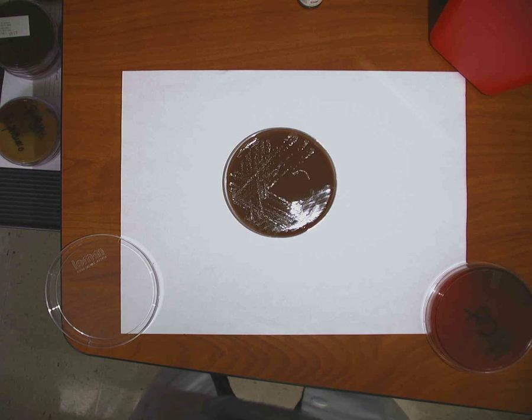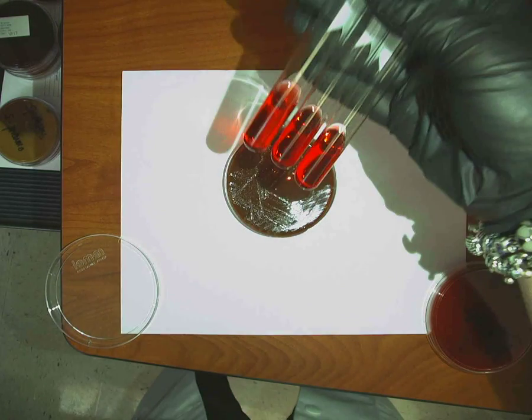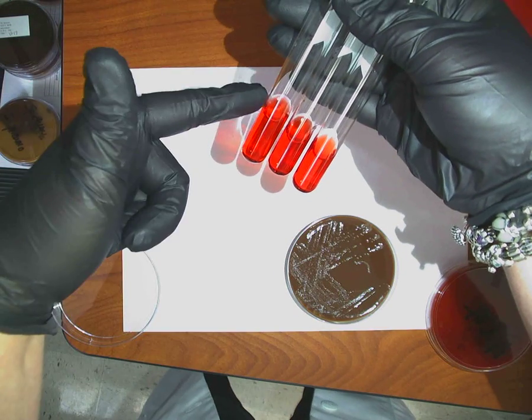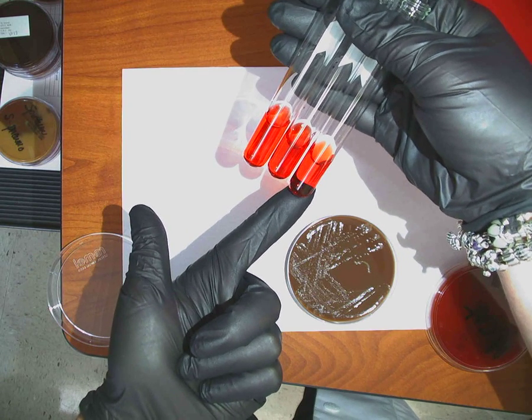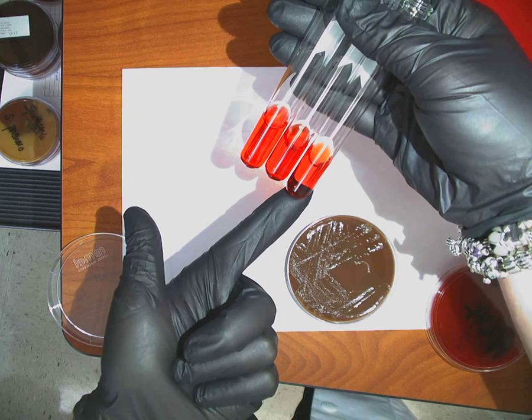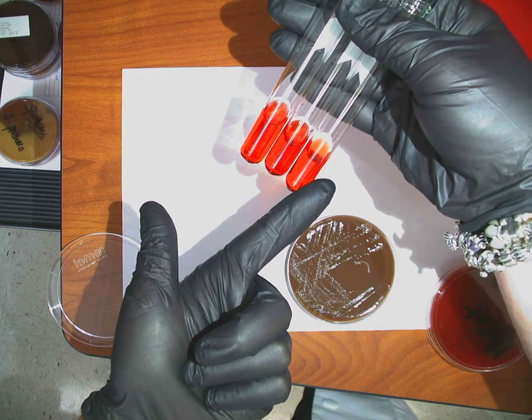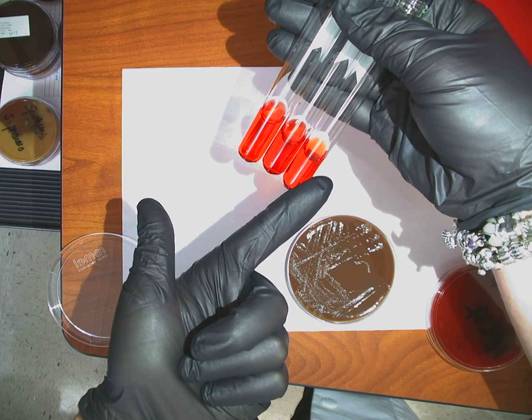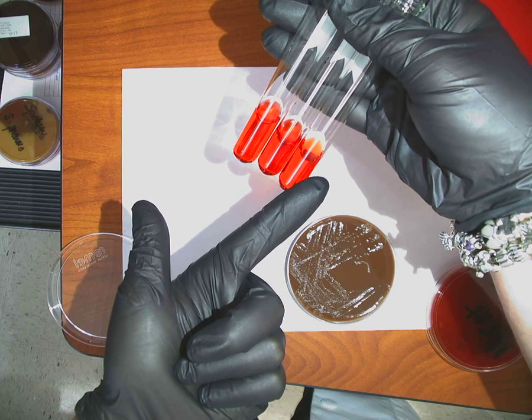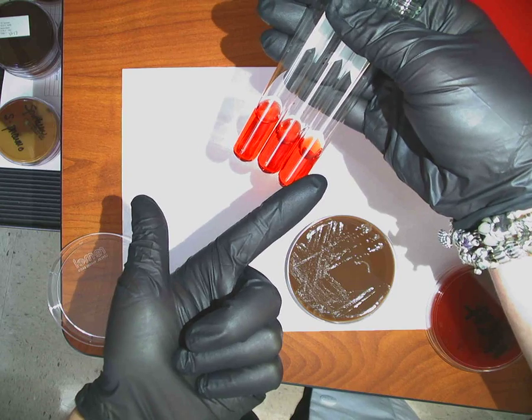So when I look at my sugars, my glucose, my maltose, and my sucrose, and I'm going to include sucrose in this just to show you, this is what I get. Glucose, maltose, sucrose. And a positive reaction or fermentation would be yellow in color. So I get all red for my sugars, which tells me what? That I know that it's not Neisseria, because Neisseria is saccharolytic, right? So this has got to be Moraxella.